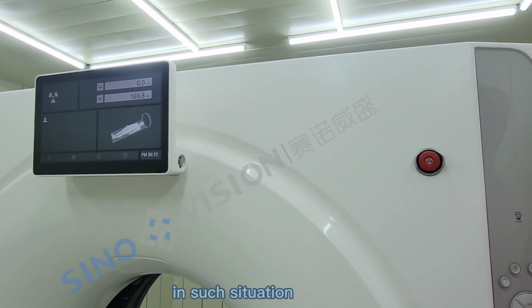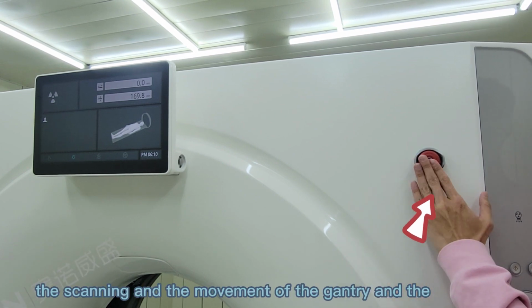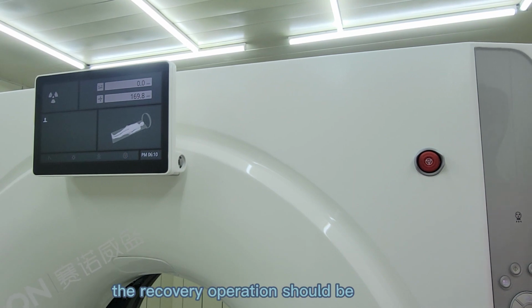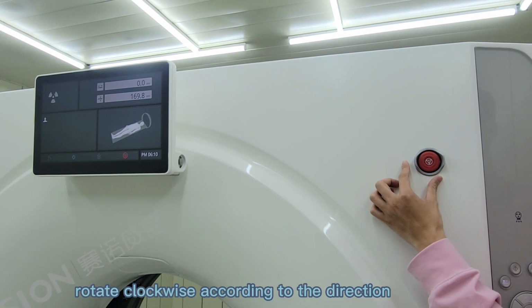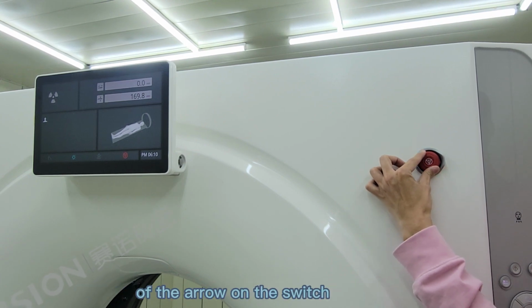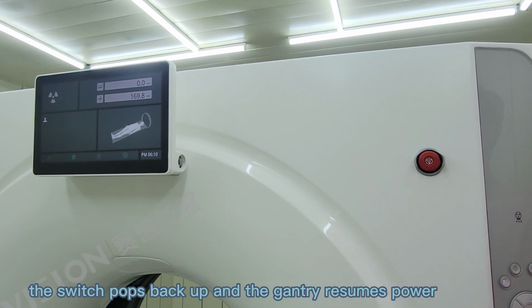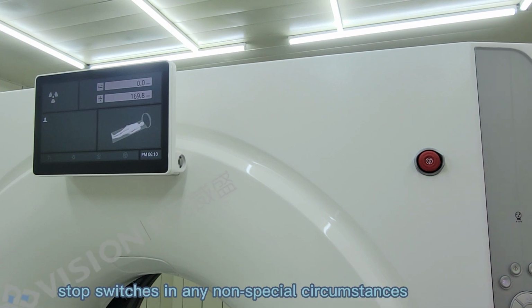In such a situation, press the emergency stop switch immediately to end the scanning and the movement of the gantry and the patient table. The recovery operation should only be applied to a pressed-down emergency stop switch. Rotate clockwise according to the direction of the arrow on the switch. The switch pops back up and the gantry resumes power. The recovery process takes 30 seconds. Again, try not to use emergency stop switches in any non-special circumstances.